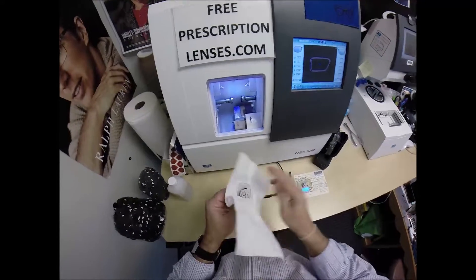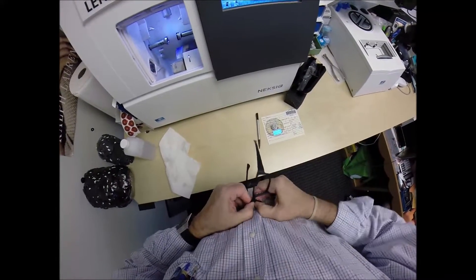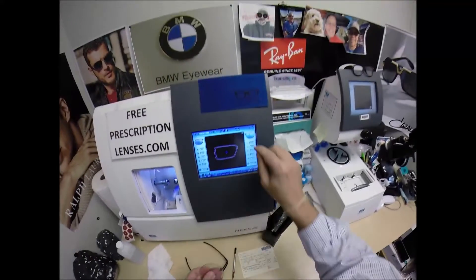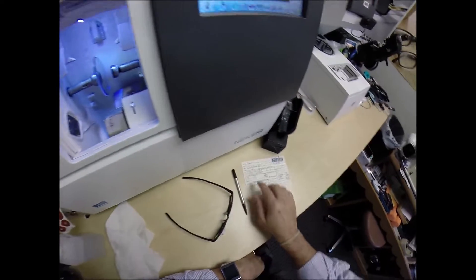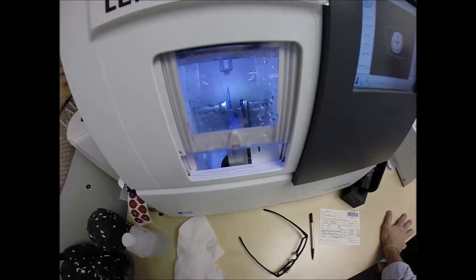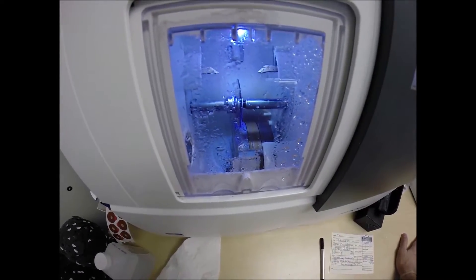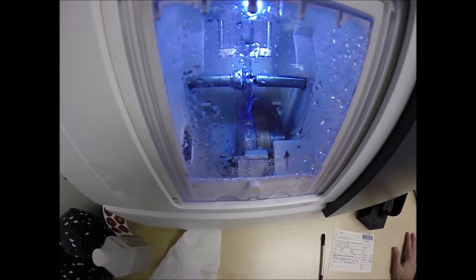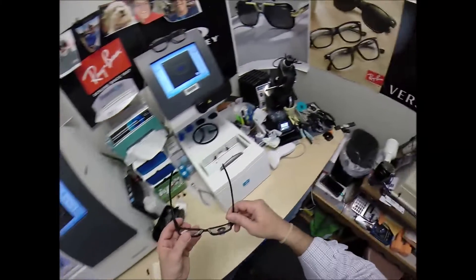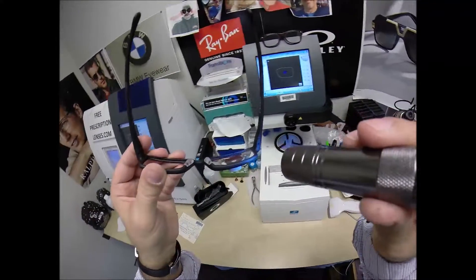Let's dry the lens off, tuck it in at the outside corners, push down at the nose — now it snaps in there easily. For the left lens, place the magnet into the chuck — today I'm calling it the Darren. Hit the green start button; the door closes, the clamp shuts. The two white styluses trace the left side of the frame, making sure the lens is large enough to fit, then measure the thickness at every point to know exactly where to place the bevel for the least amount of edge thickness. Look at that, Darren — you've got no edge thickness showing.